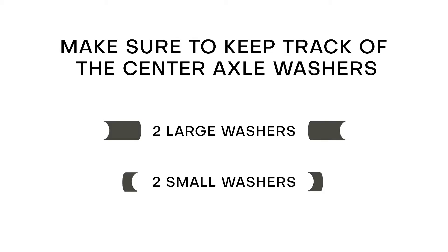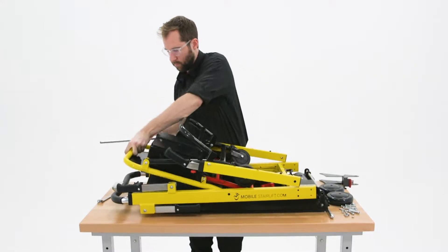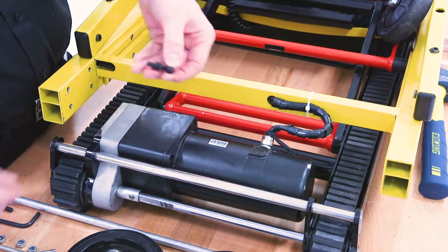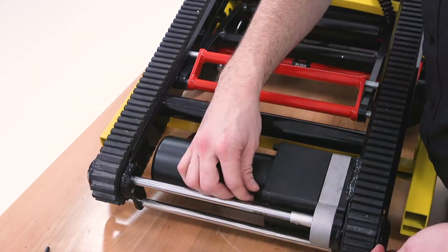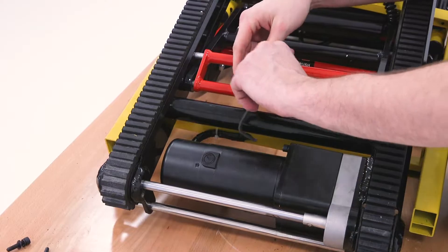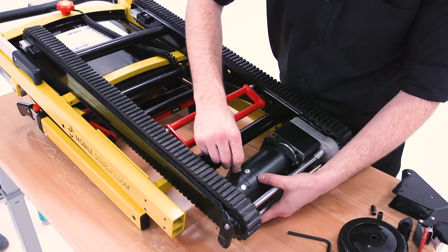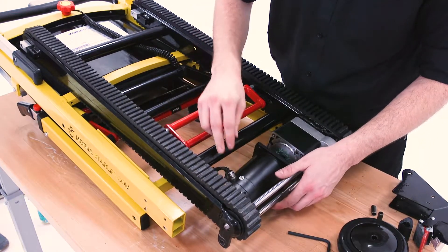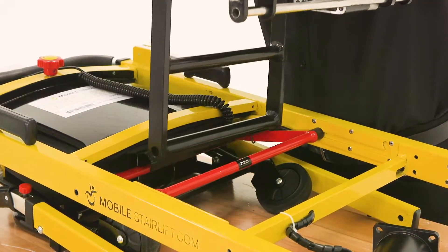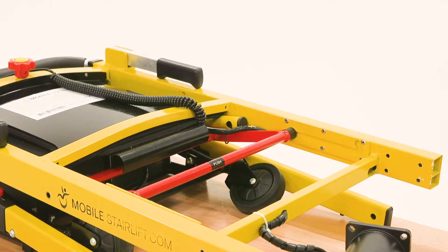There are two large and two small washers and one of each goes to both sides of the chair. Return the seat to its folded position and use the hex wrench to loosen and remove the two bolts on the top side of the motor. Flip the folded stairlift so that the tracks are again facing up and loosen and remove the remaining two bolts, taking care to grip the motor as you remove the final bolt. Once the bolts have been removed, pull the cylindrical part of the motor gently out of the motor housing and place it on the surface below the tracks. You may now gently lift up on both of the tracks and unhook the hinged black component from the black metal lip on the main frame of the chair to remove the entire track housing.